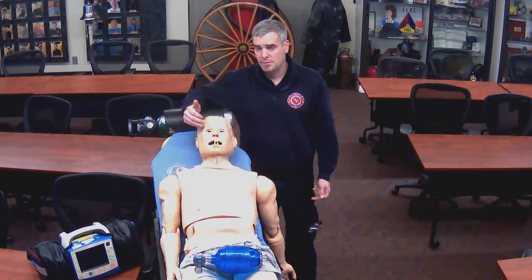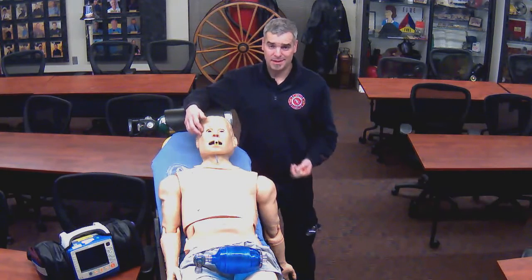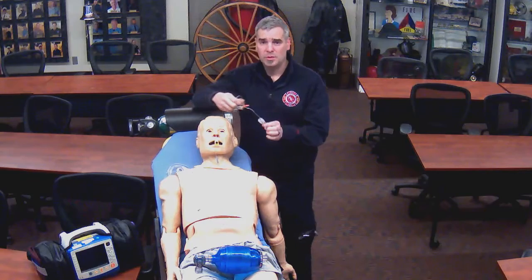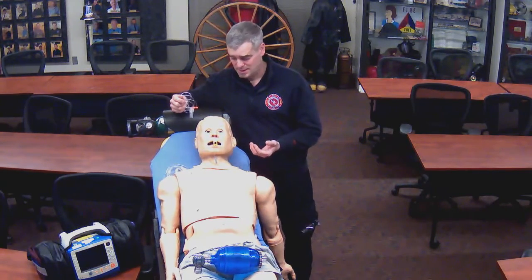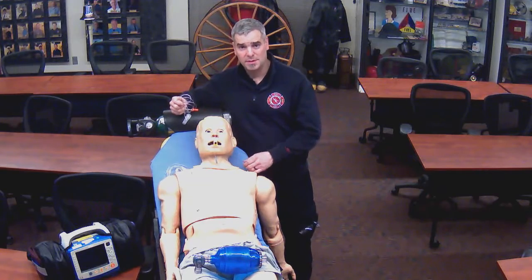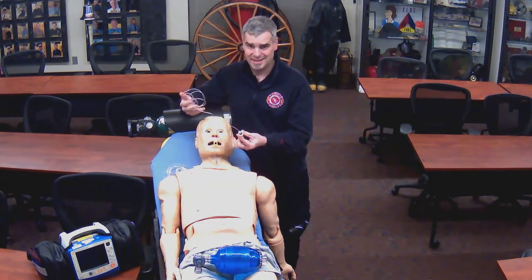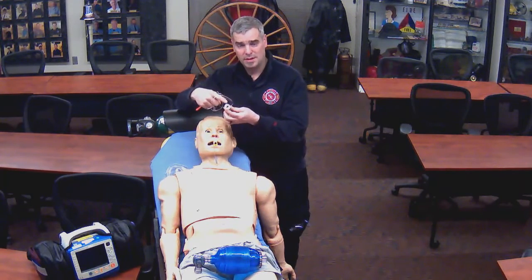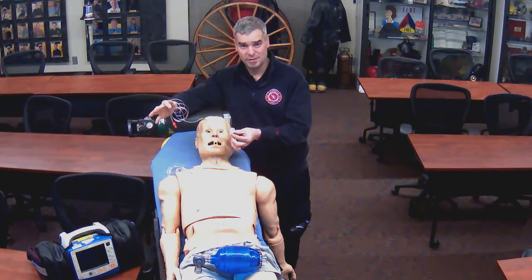So our first method of monitoring ETCO2 was through the nasal cannula. The second method is the inline ETCO2 monitor. We would use the inline ETCO2 monitor anytime a patient is in cardiac arrest or any type of advanced airway is being utilized. The inline doesn't need the nasal cannula. It does not deliver oxygen. It's simply suctioning a little bit of gas from that tube and telling us what the patient's ETCO2 level is.